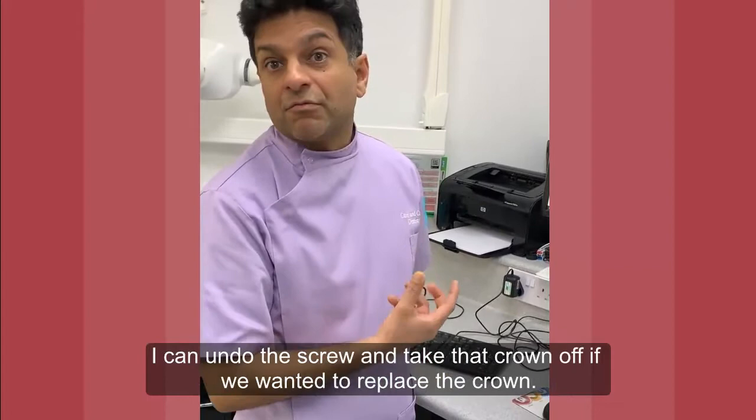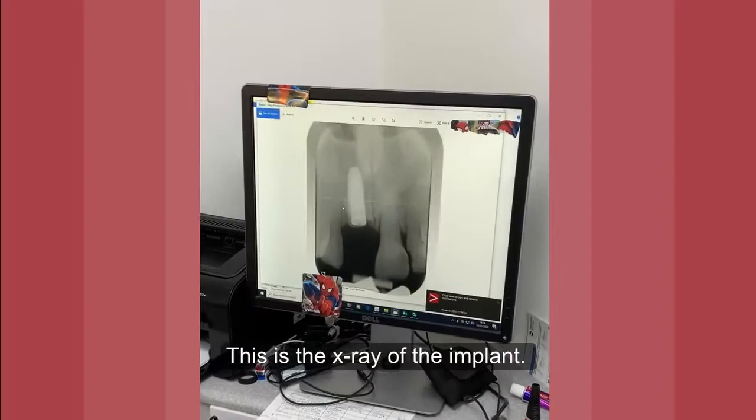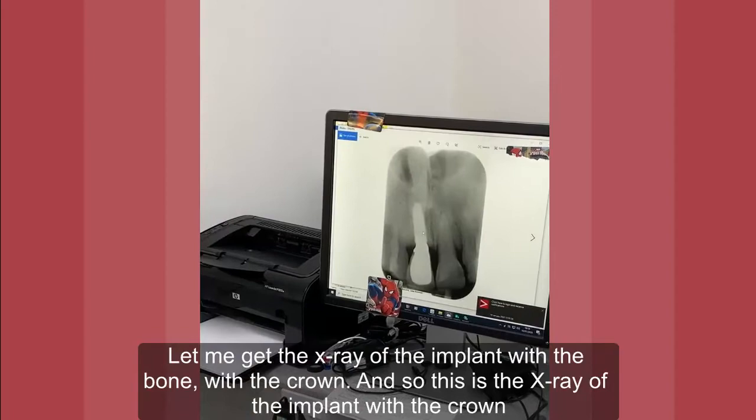And this is the x-ray of the implant. This is the x-ray of the implant with the crown.